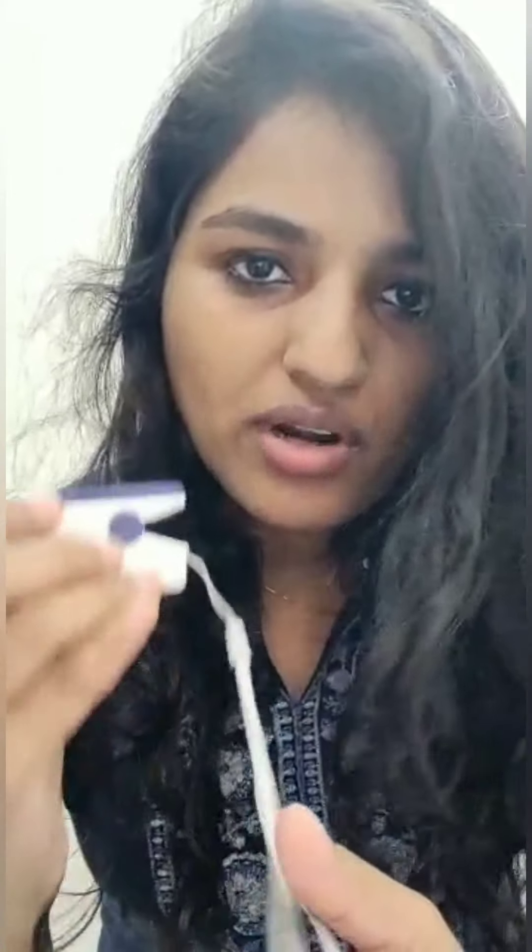You can see yourself that these Chinese pulse oximeters are not at all reliable. This will give you a false sense of security — it may be worse than that. You will check your oxygen saturation and it will show normal values which would be false. So kindly do not buy these pulse oximeters if you are considering buying any for your family. Thank you.